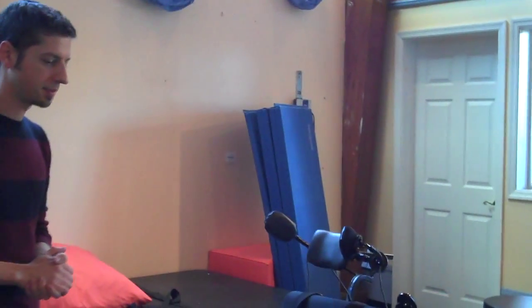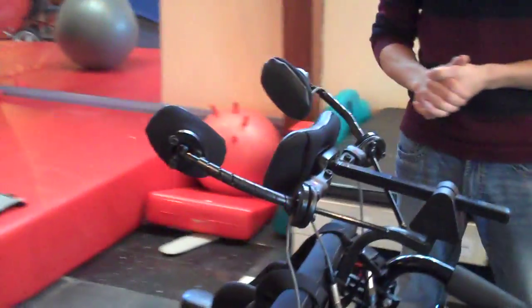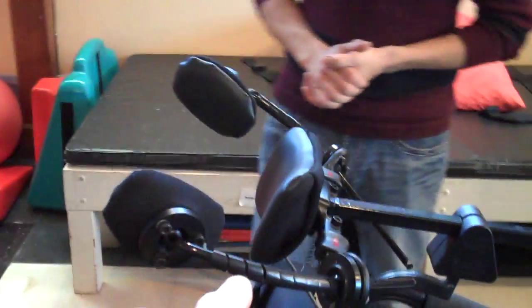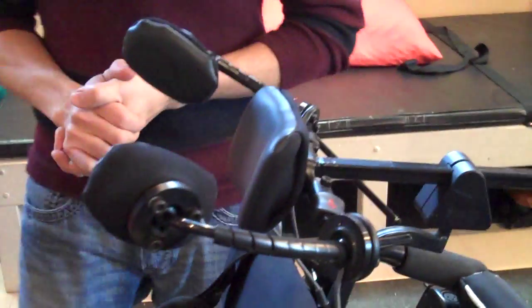Let's walk around to the back of the chair. I'm just going to point at stuff and you tell me what it is. Actually, let's start up here. So it looks like we have a head array. Yeah, this is an ASL head array.